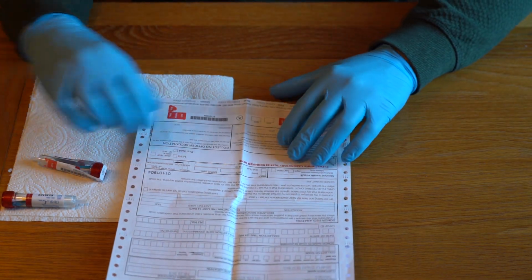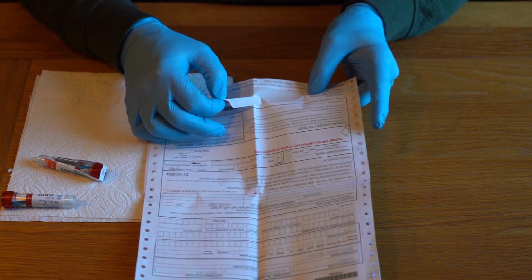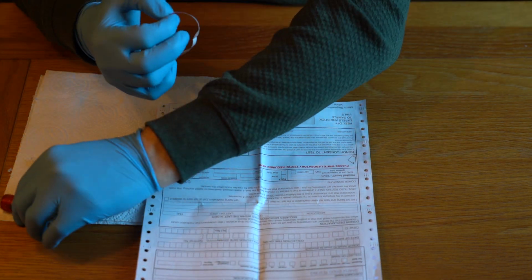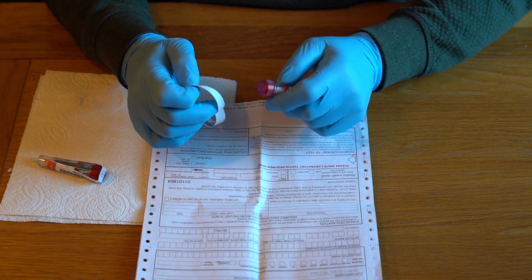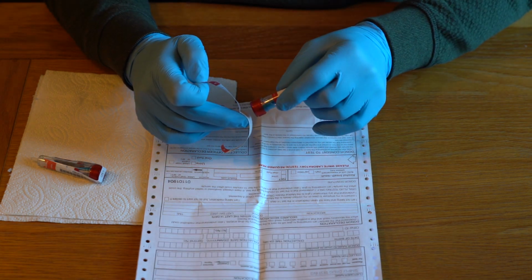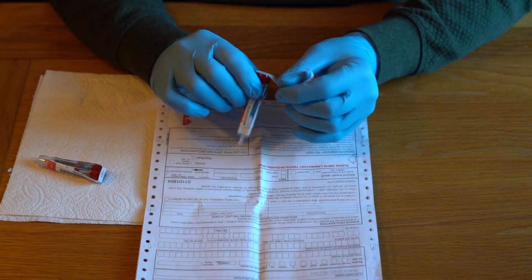like that. The other way of doing it, which is going to be slightly trickier, is if I just simply peel the thing off like this. What you'll find now is very often it'll coil up again against itself. And you've then got to try and unstick it, and what you don't want to do is get any tears or rips in these things before they go off to the lab. So the easiest way to do it is the one I did for the first one, but we've now got this one here, which is the letter A.